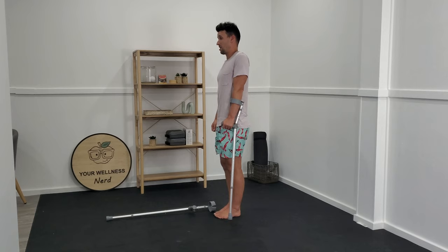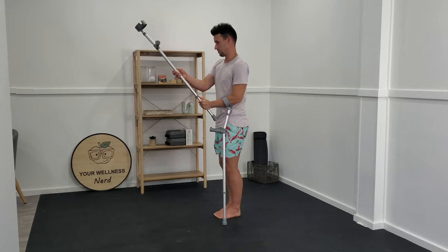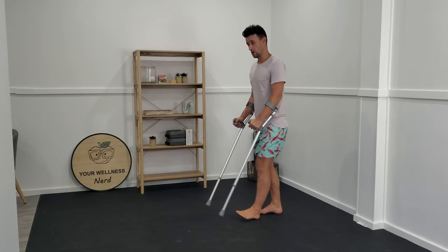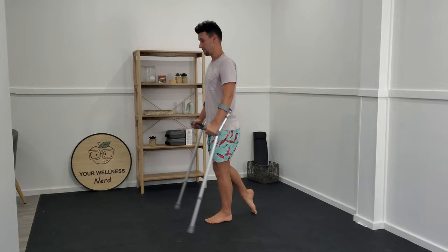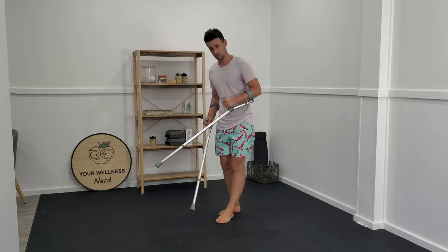In a perfect world, when you've got good posture, you should feel like your crutch is there supporting you in that posture. So if I change the same thing on the other crutch and take it up two notches, I feel automatically like I'm able to be up a little bit taller than I was previously. It feels a more natural expression of good body mechanics, which will ultimately allow the rest of my body to feel as comfortable as possible while I'm using these crutches.